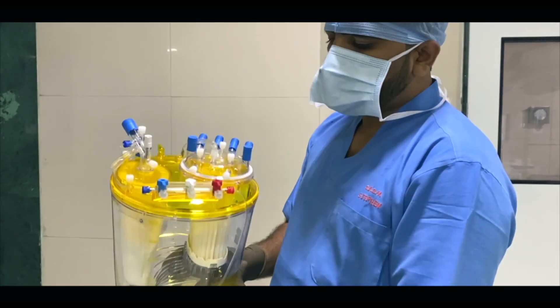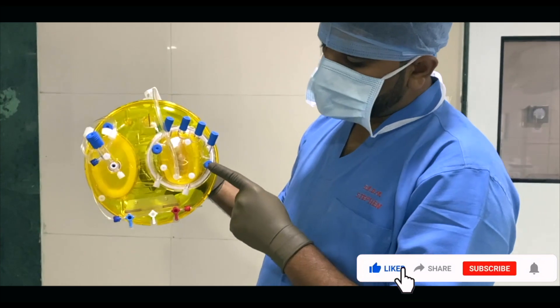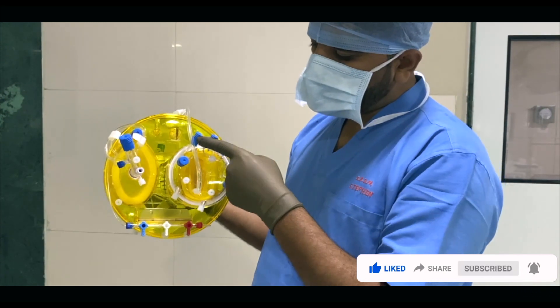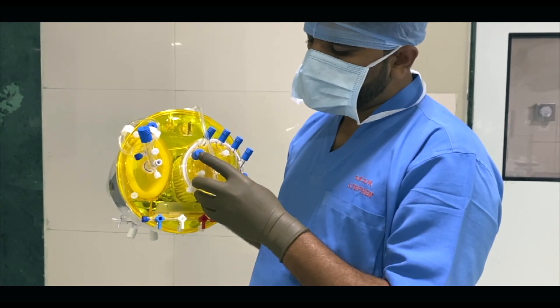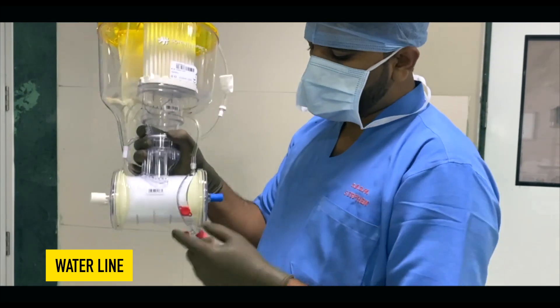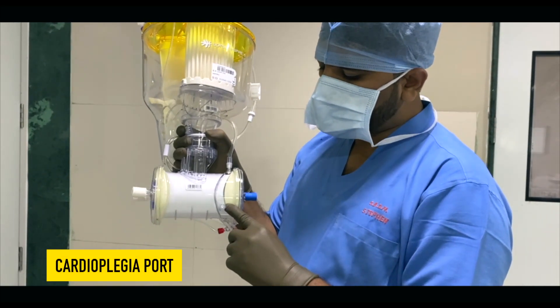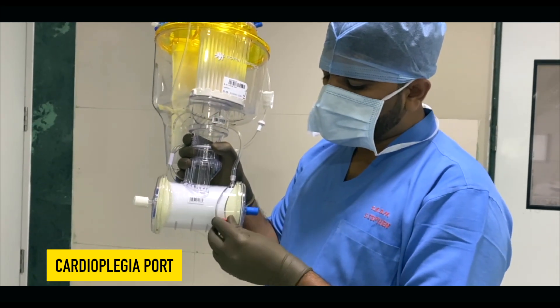Next are the multiple ports on the top of the oxygenator. First is the quick prime line, then four suction ports are available, three 3/8-size ports are available, and two purge line ports are available. There is a water line inside a white cap color. This is the cardioplegia outlet port — it has a spring inside and you will get the connector with the oxygenator for cardioplegia.